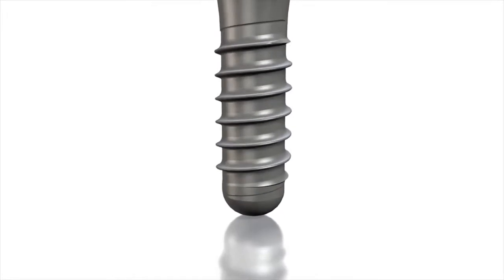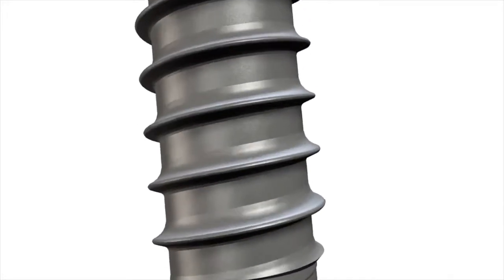Straumann, the pioneer in the field of surface technology and implant dentistry, has developed a groundbreaking surface concept.